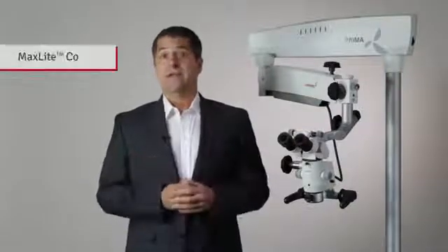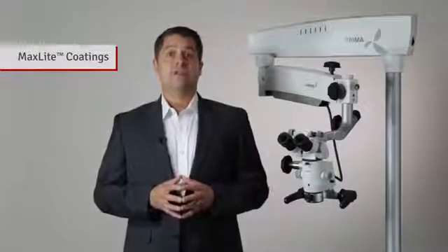Further, all LaboMed microscopes feature a proprietary surface coating technology called MaxLite, which provides the highest level of anti-reflection, anti-glare, and scratch-resistant properties. MaxLite coatings guarantee that you'll consistently see the most accurate image with the Prima.